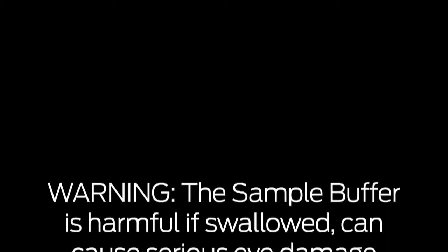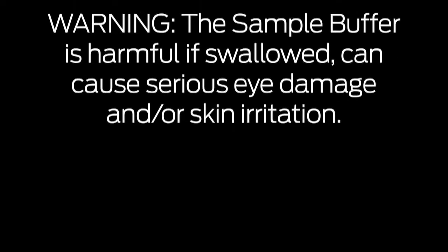Warning, the sample buffer is harmful if swallowed, can cause serious eye damage and/or skin irritation.